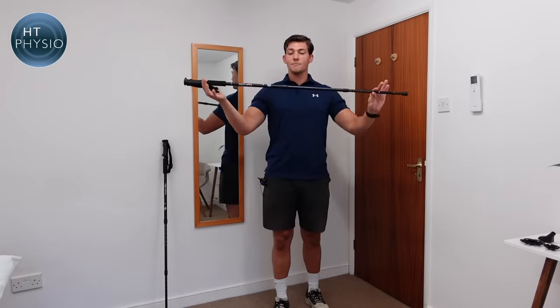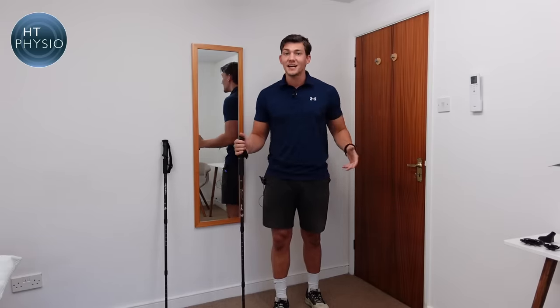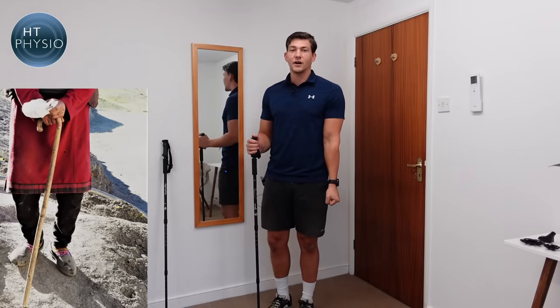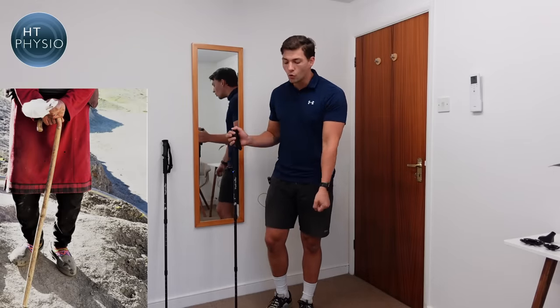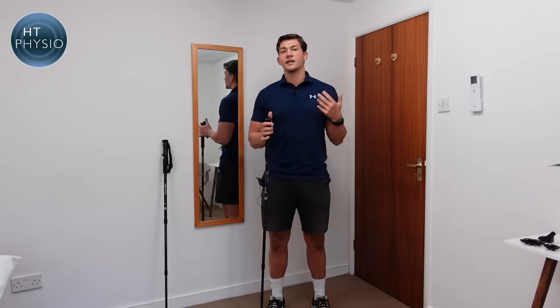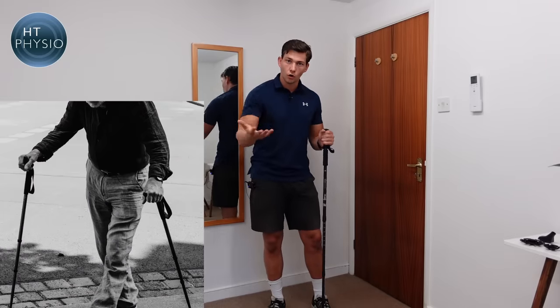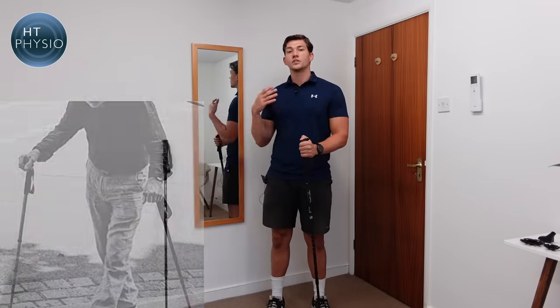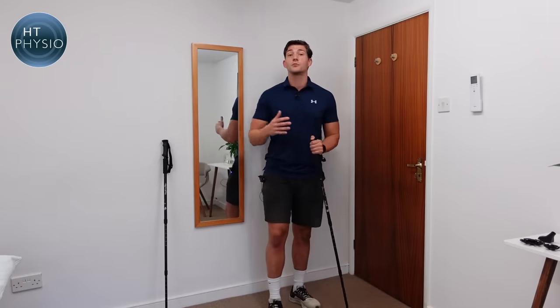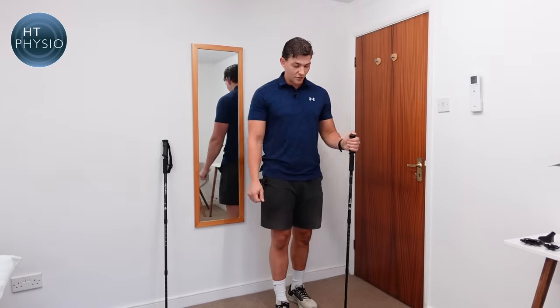These are a great bit of kit and they're different to what I would call a walking stick or cane, which has a flat handle and is more of a typical walking aid. These are a little bit different in that they are more athletic. They're used usually for people who want to go on longer walks or hikes or climb tricky terrain, but they can be just as helpful for problems like back pain, knee pain, and hip pain as their cousin the cane.